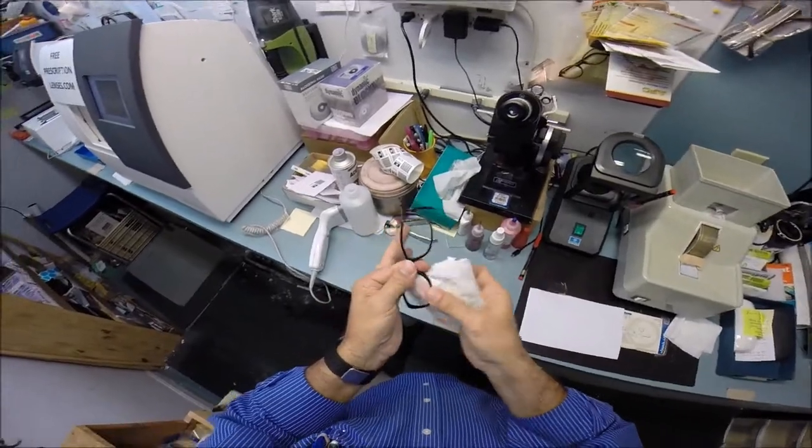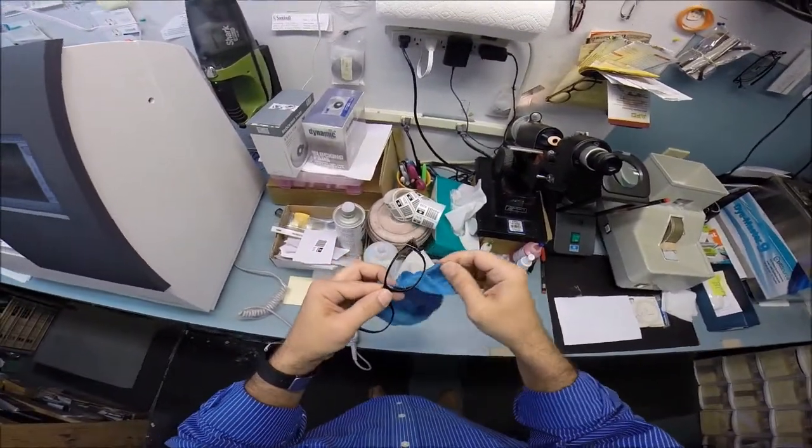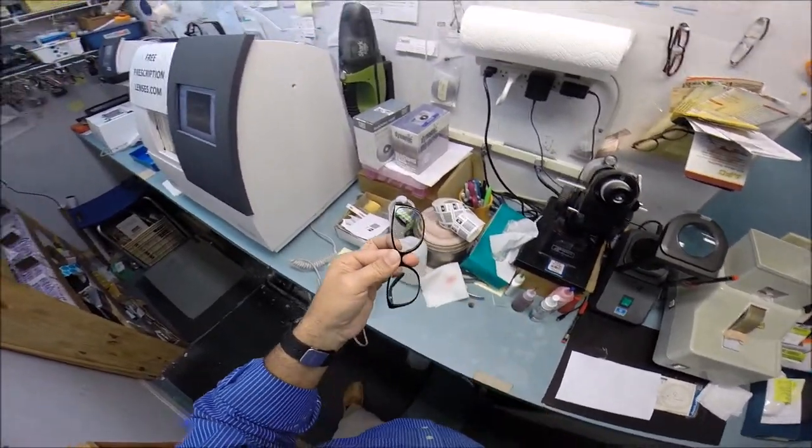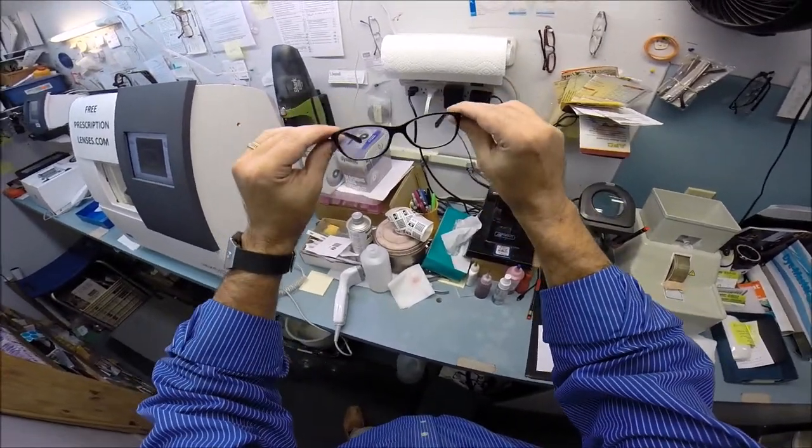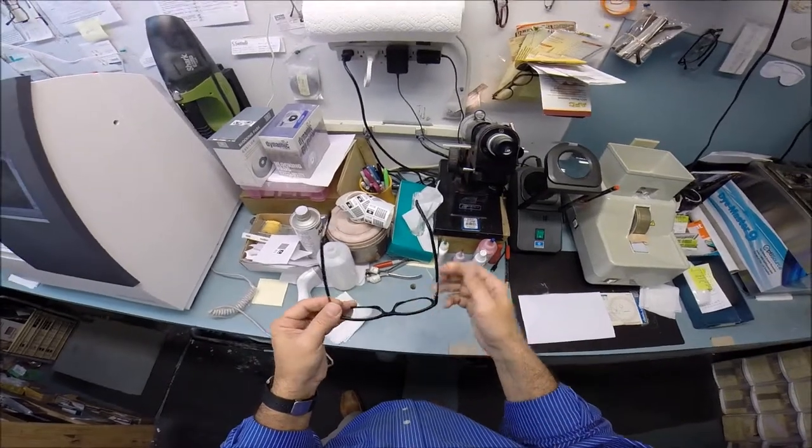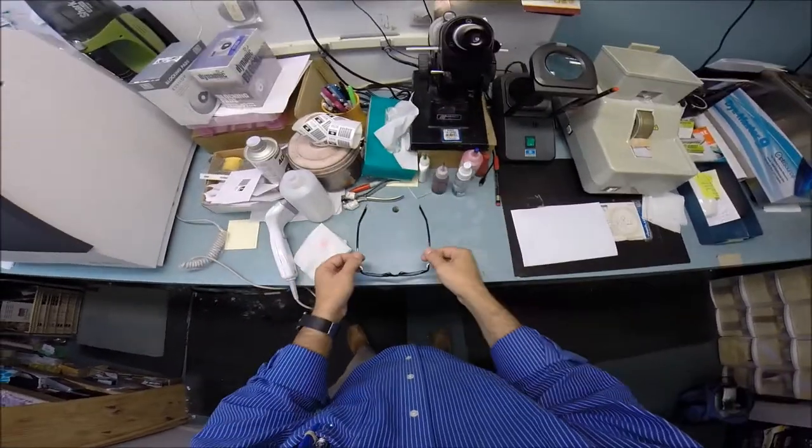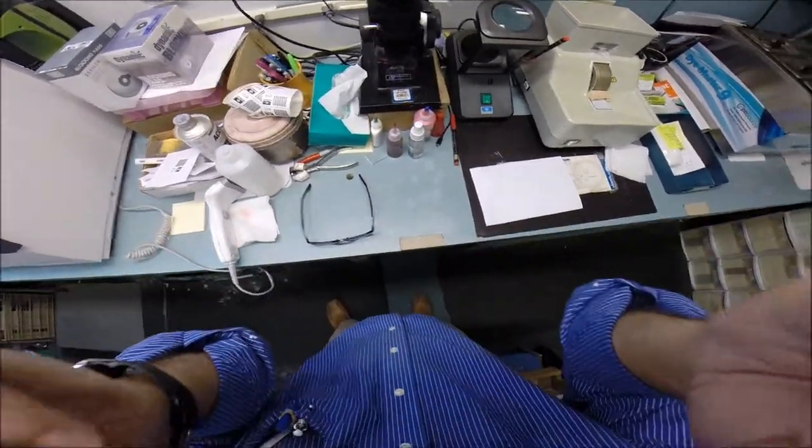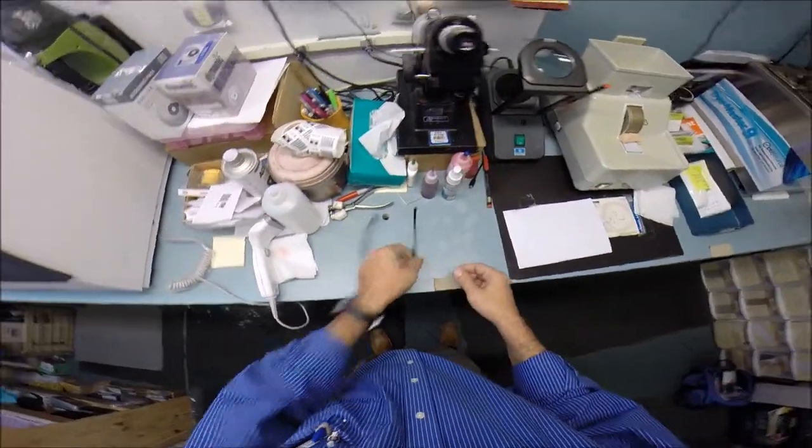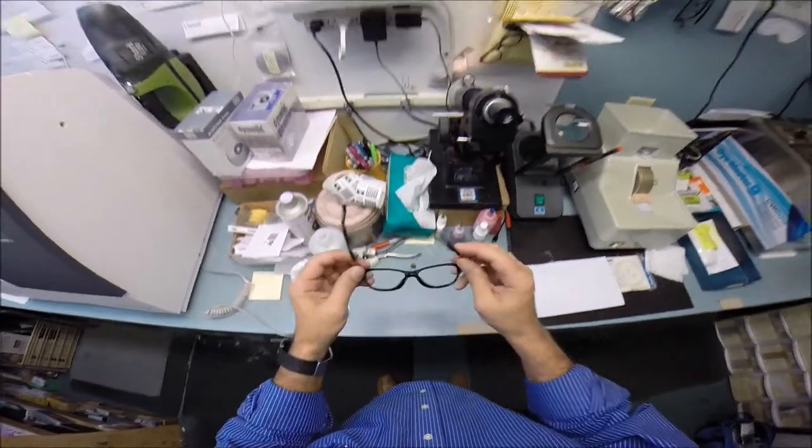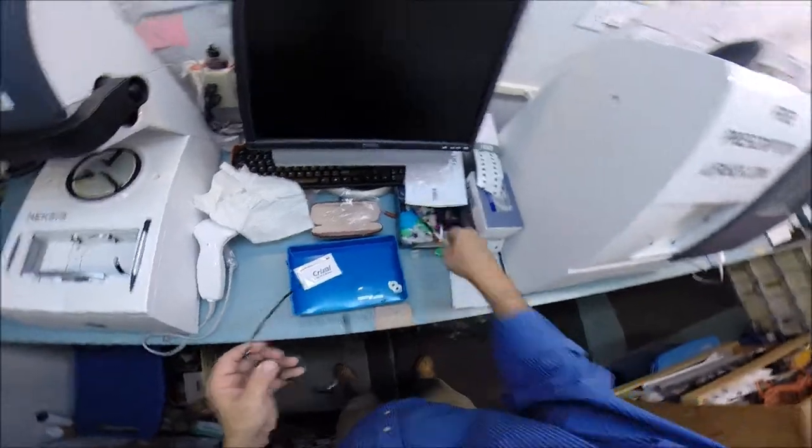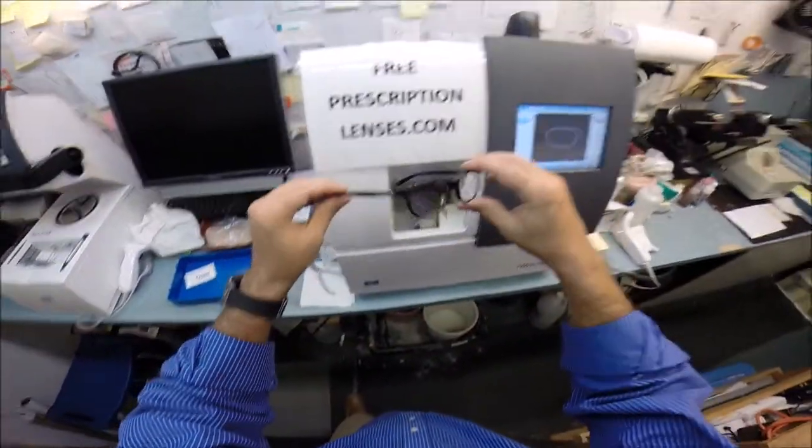Of course, while I'm cleaning, on the frames that I sell, if you get these in the mail, chances are these are too loose or too tight, but realistically the biggest problem you will have is that 80% of people have one ear that's higher than the other. So when you try these on and one side is higher than the other, you know why. But that's why 99% of all optical shops will do free adjustments if you ask them to. I'm going to get it in standard alignment which means a three-point stance: one, two, and the bottom of the frame being three. I set it on the counter next to my hand and I press down. There is no wobble. I make sure they're in standard alignment and make sure the temples overlap perfectly with the same amount of tension on each hinge.